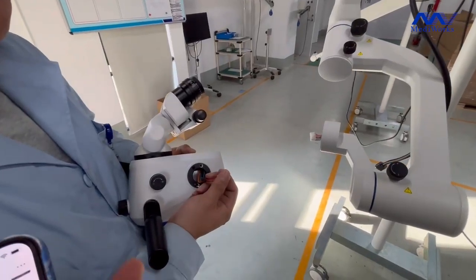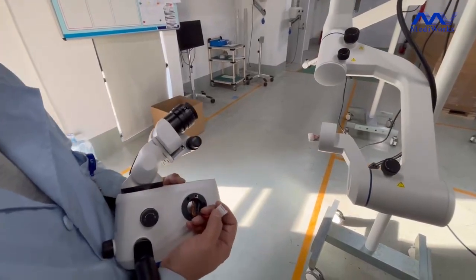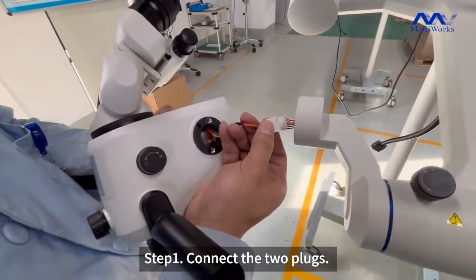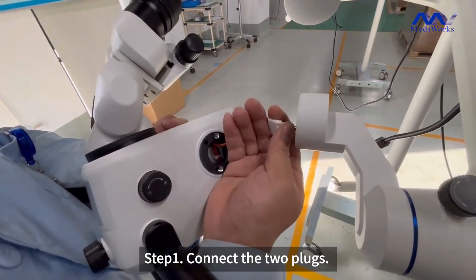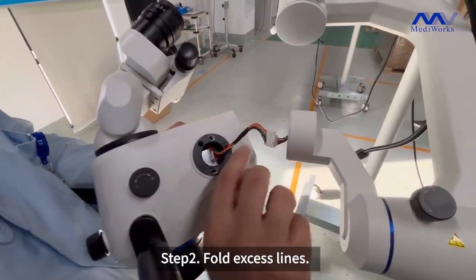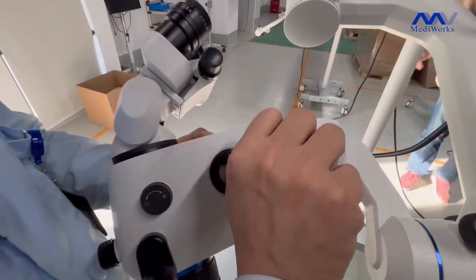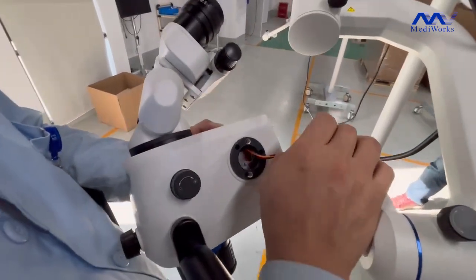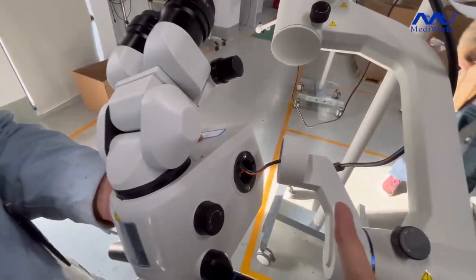This is our microscope body and this is a C-arm. Firstly we should connect the two plugs. We should fold the external lines — you see that? Make sure that all of the lines are inserted on the C-arm side, this side.